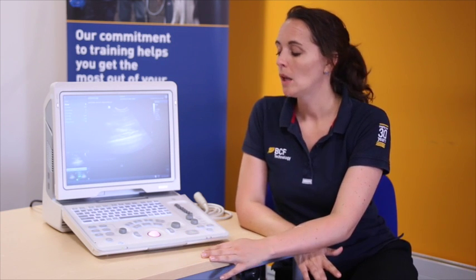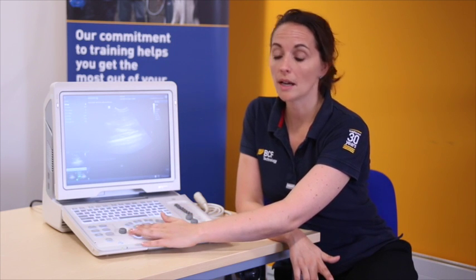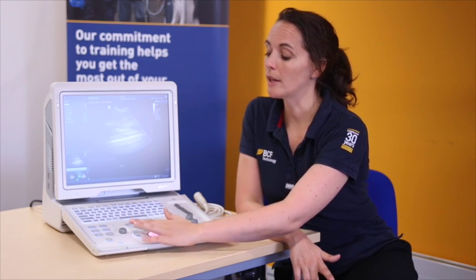Once you've frozen your image, you may want to take some measurements. There are two ways to do this. We have the measure button, which is on the bottom left hand side, above the cursor. The measurement button will not only measure the distance, length, or area you desire, but will also put a name on it as well.